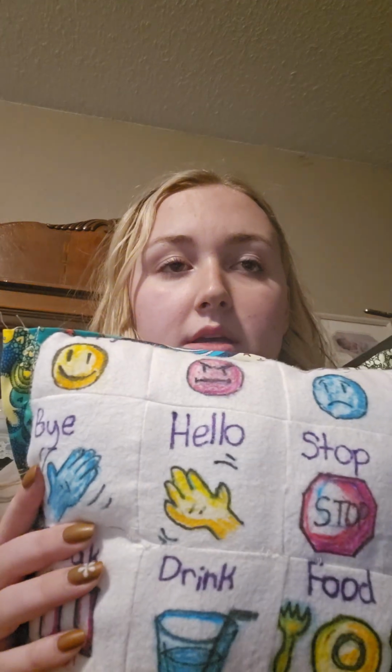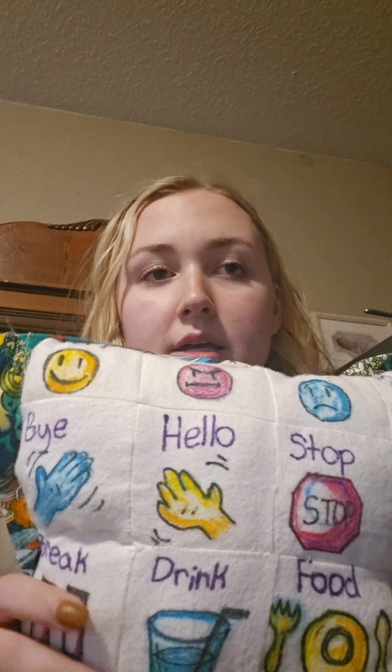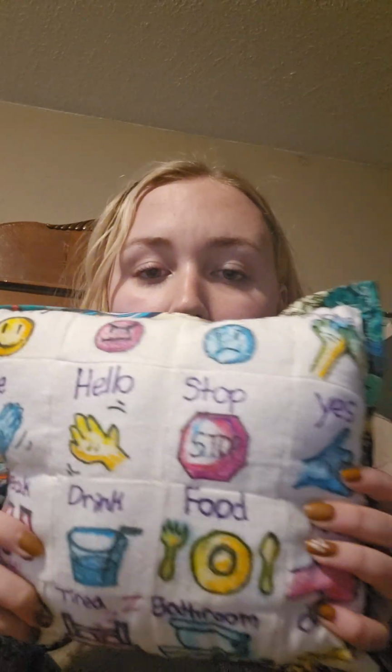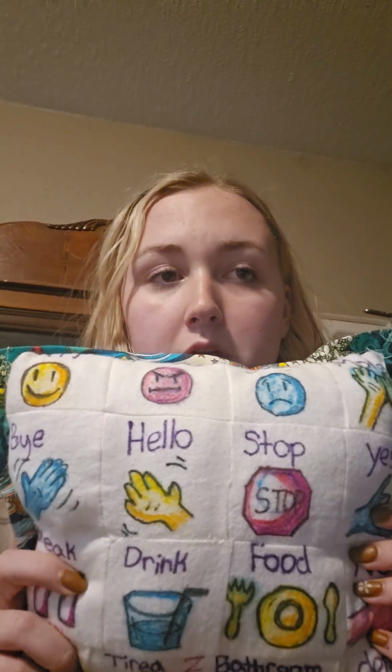But commonly needed words such as yes, no, help or stop, break, bathroom, happy, sad are written in large bold print, and I made sure to use lots of contrasting colors to enhance visibility as well as the bold large print. This allows, especially with its smaller size, students to help communicate their needs quickly and effectively, even if they are non-verbal.